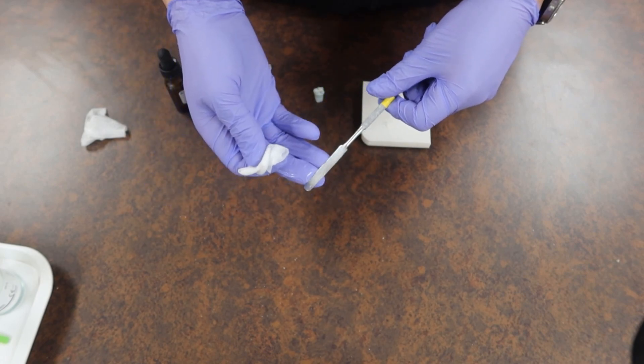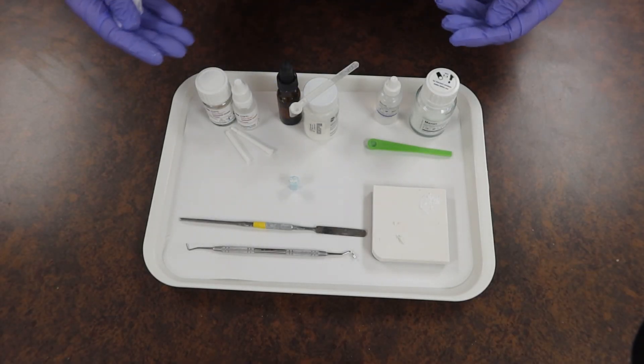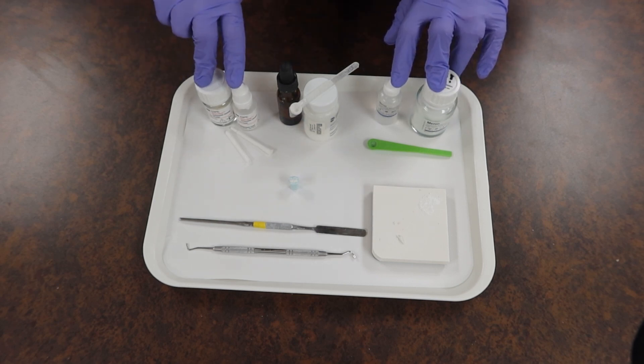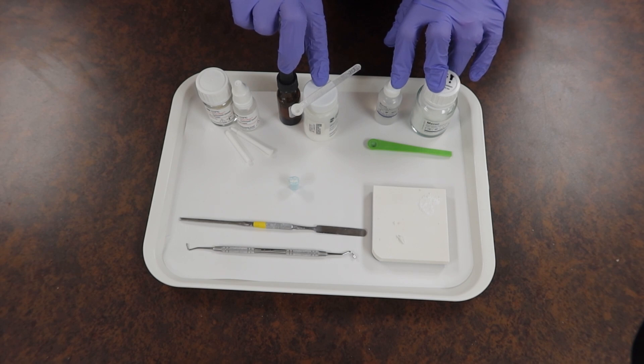Apart from that style of mixing and placing bases, all these kind of fall under that same aspect, whether they have fluoride-releasing capabilities making it more sedative, or they have more insulating properties without the benefits of fluoride, or they just need a nice temporary fix that can be in there for a short amount of time so we can monitor the health of the tooth.